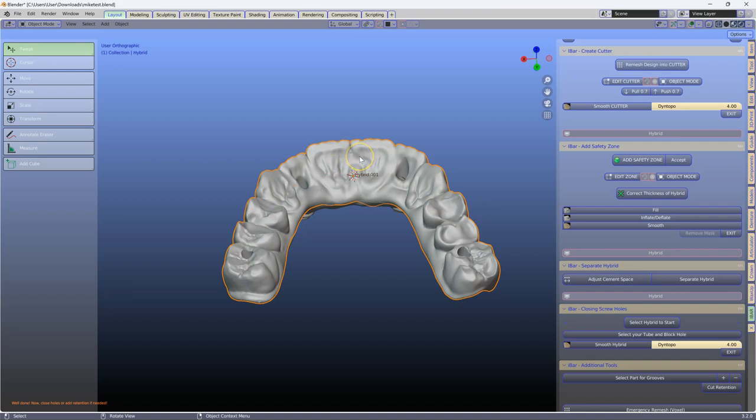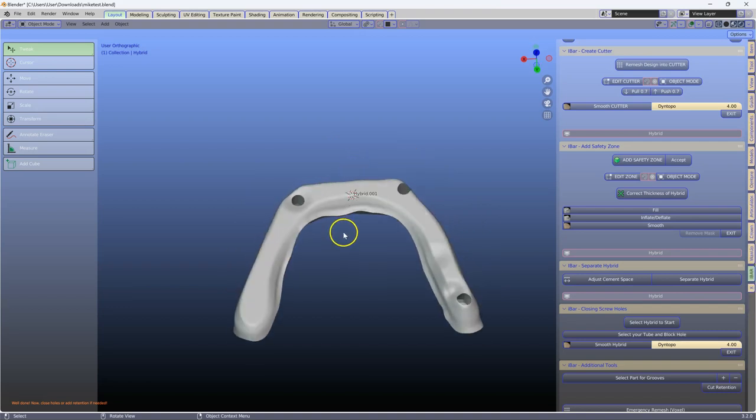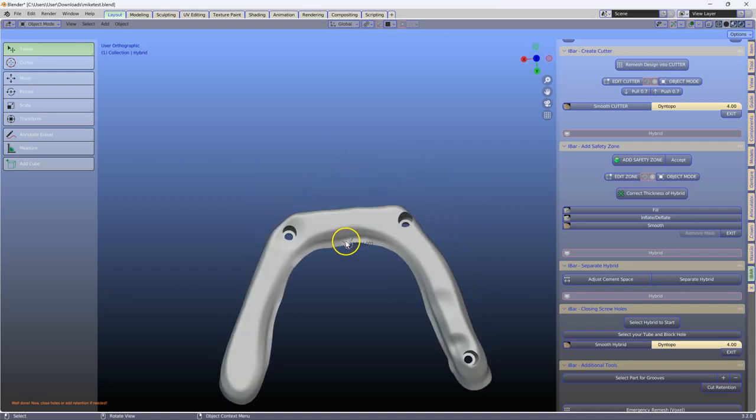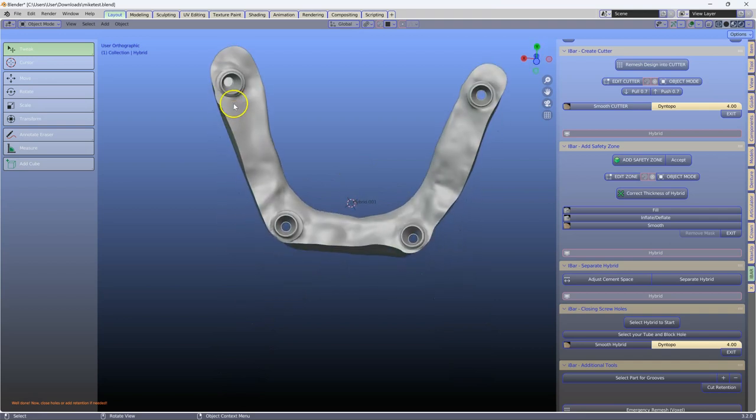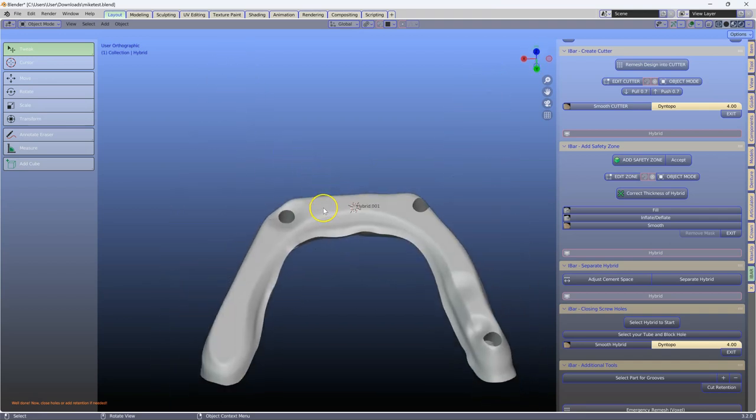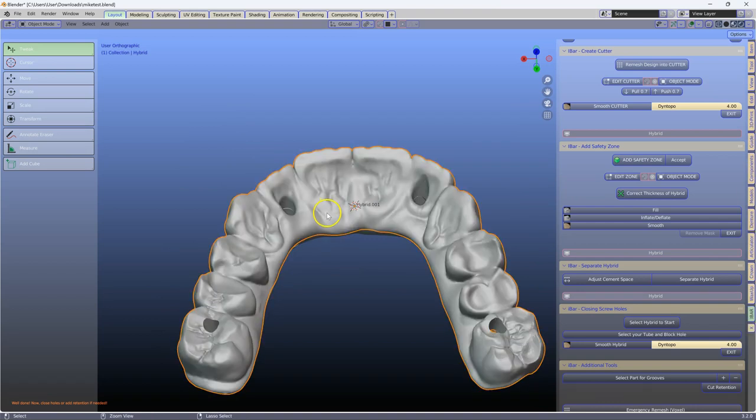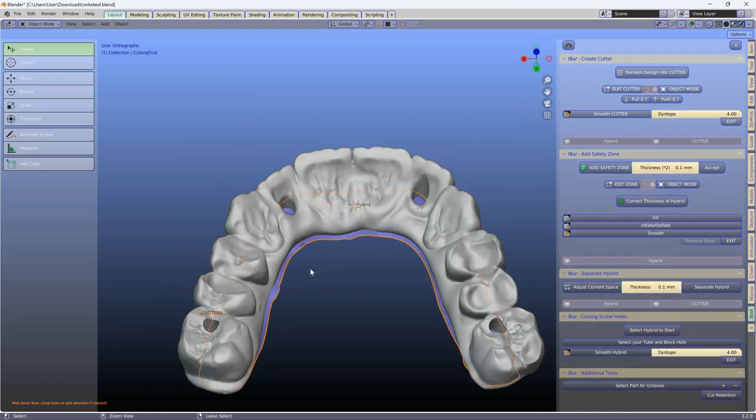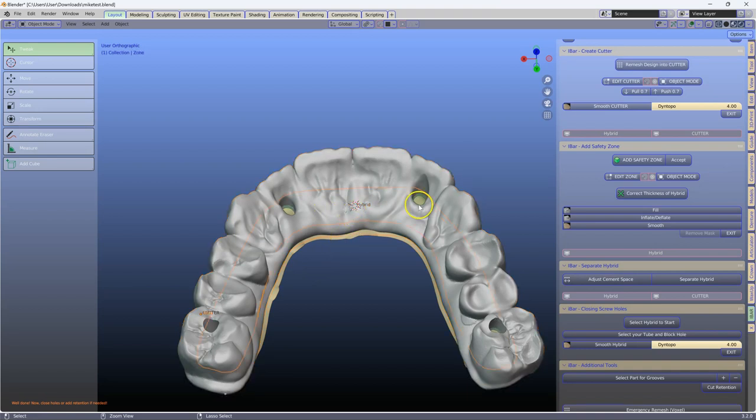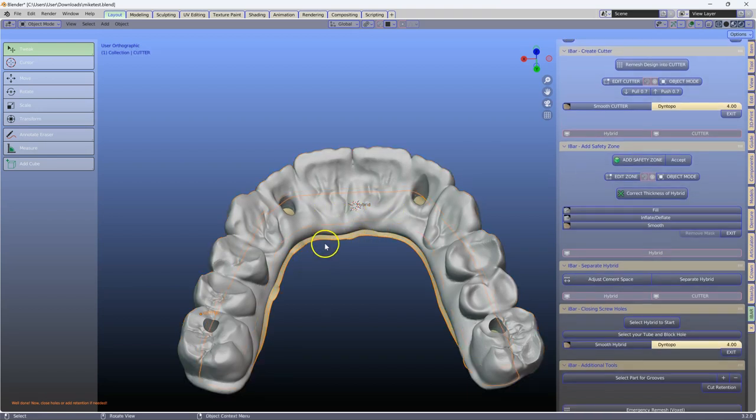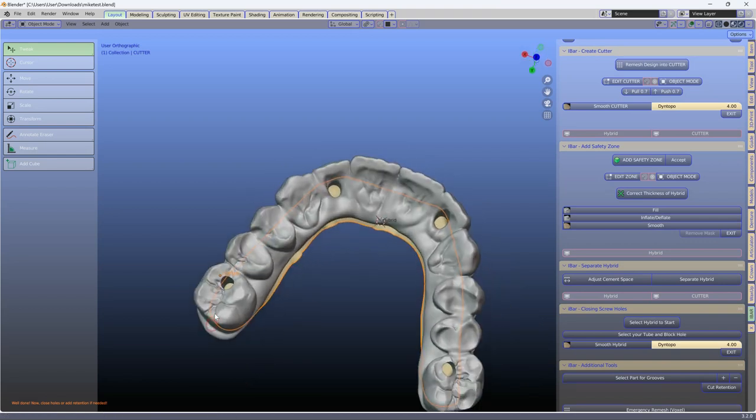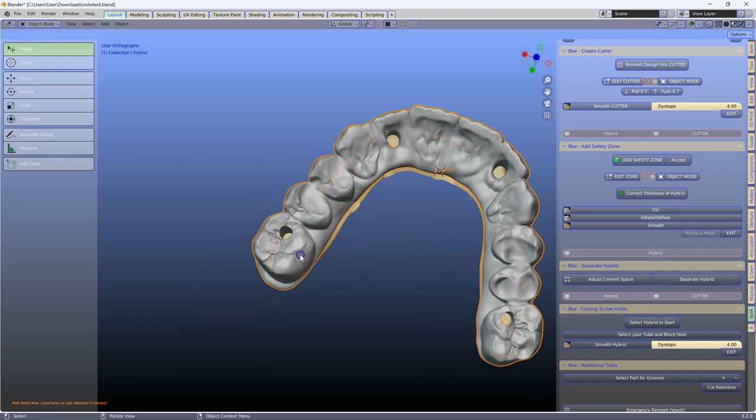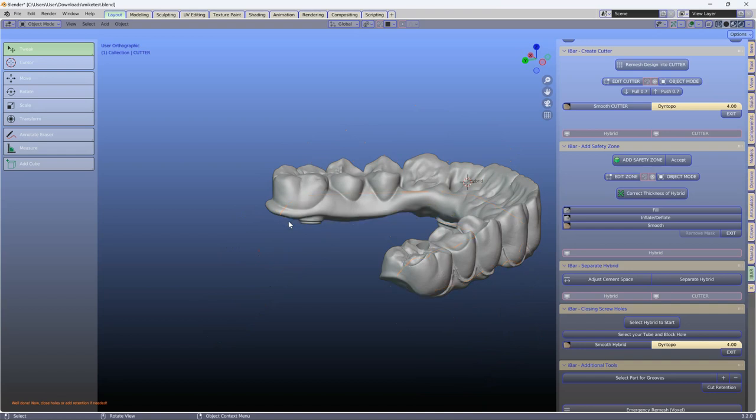Let's have a look and see what we've got. All right, this has worked perfectly, but this one hasn't, which tells me that that screw hole was also defective. I'm going to go back a few notches until we get to the cutter, the safety zone.